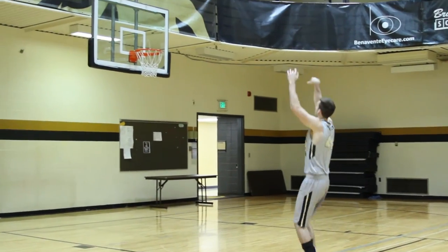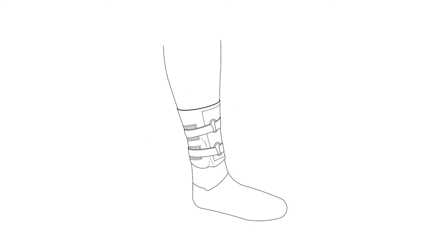To them it's something that gets them down, and the Brace to Play ankle brace is something that takes the pain away and prohibits that from happening. With a dedication to alleviating pain, Brace to Play looks to continue its mission in assisting users in a faster and more convenient recovery.